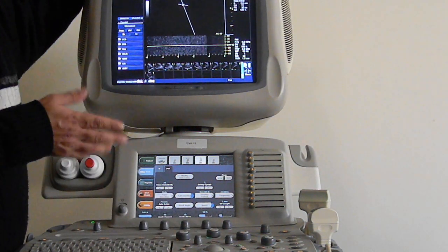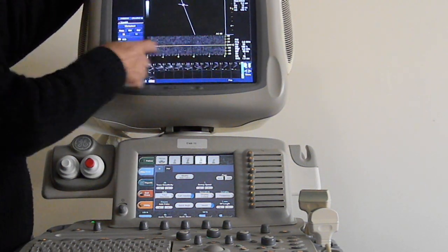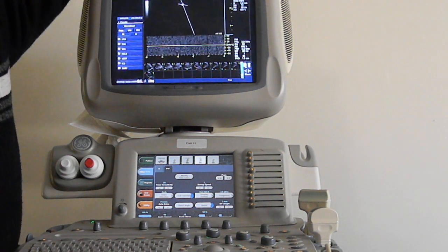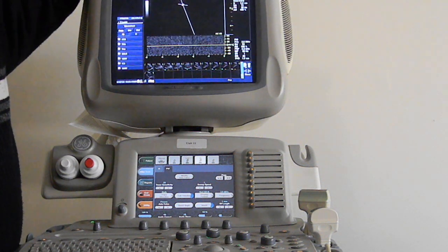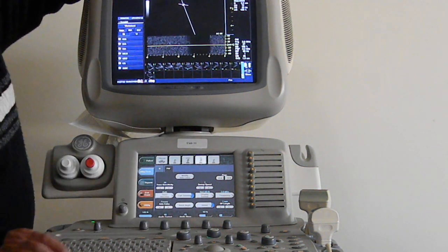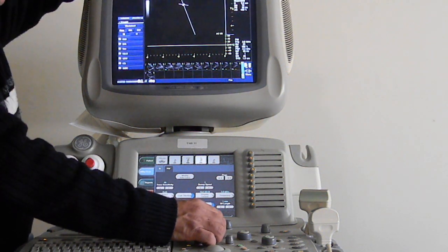Now usually it's okay if that's the case. What you see here in your graph, all this here is noise, just like what I did in the color, where I filled up the box with color that we call confetti. You don't want it to be something like this. You don't want it to be something like this either.